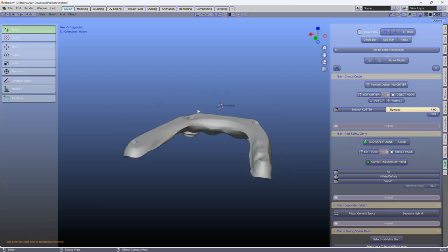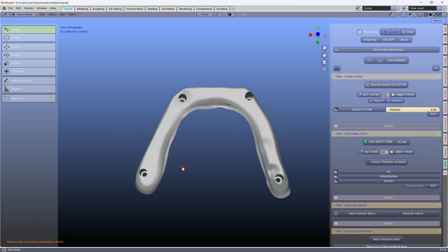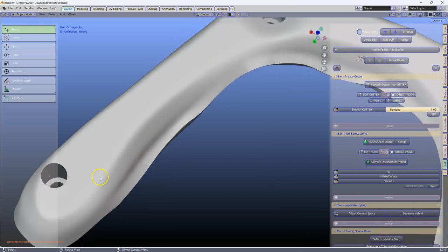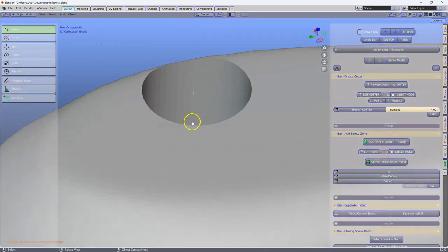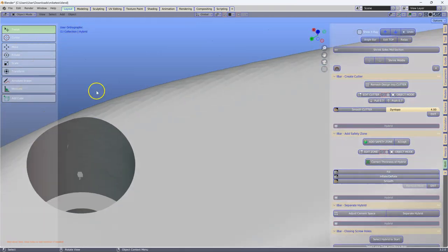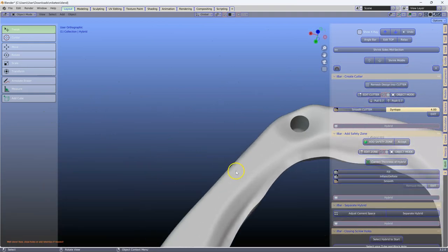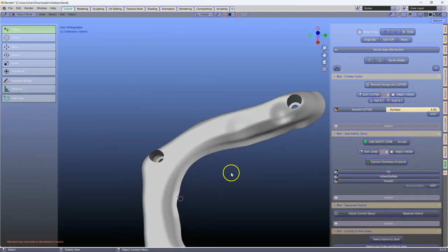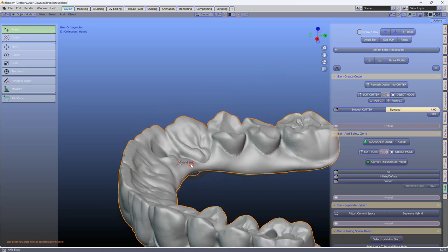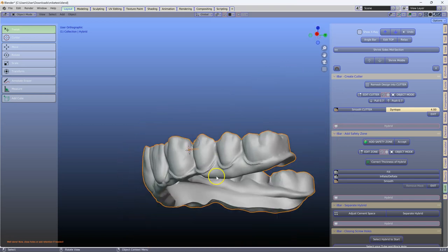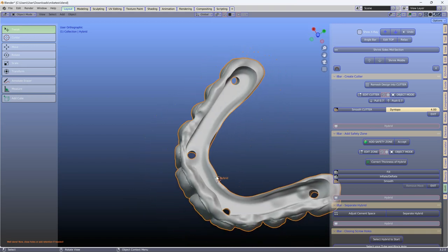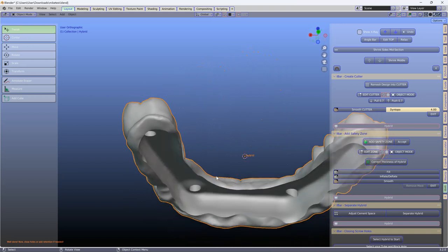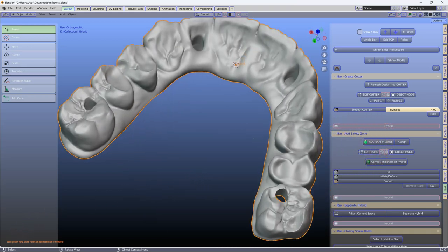And here's the end result. Here we can see there's a bit of a flaw there. And this is, again, due to the incorrect mesh structure to start off with. The rest looks okay. All right. Thank you.